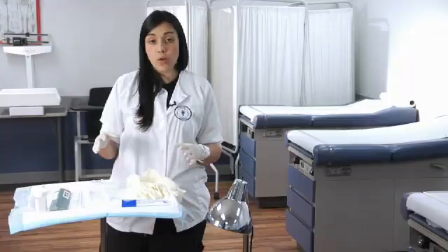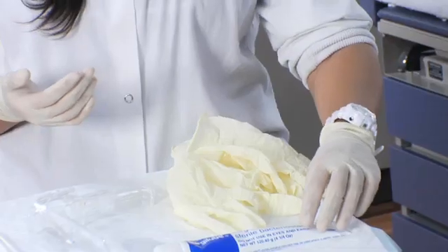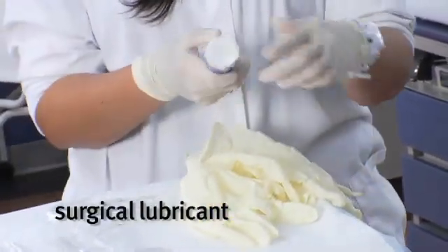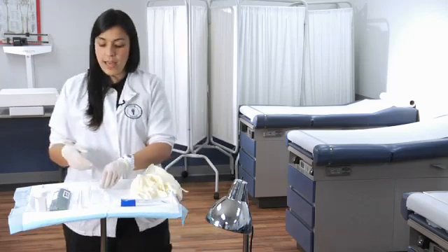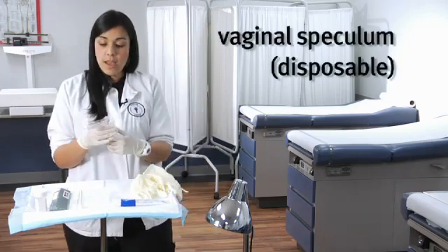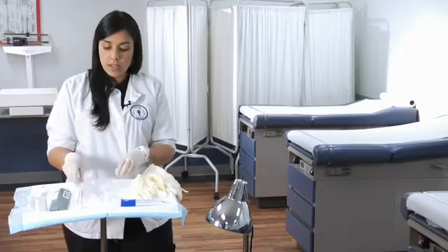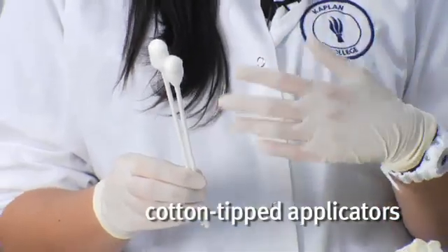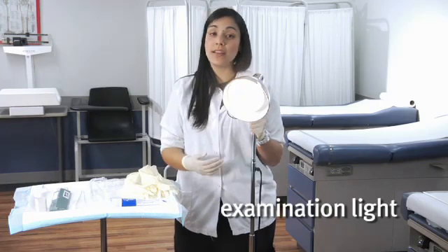Let me take you through the equipment you'll need here. Two pairs of gloves in case the doctor needs to change gloves — one will already be prepared. Some surgical lubricant; depending on the doctor's preference it might be on the tray or poured onto the tray ready to use. You also have the vaginal speculum, which is disposable and is what's actually going to be inserted into the vagina for visualization and to obtain the cells. Some cotton tip applicators just in case the patient has any abnormal discharge or bleeding that the doctor needs to clean off. And finally, the examination light, which is going to illuminate the walls of the vagina.